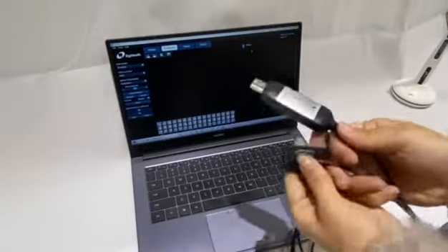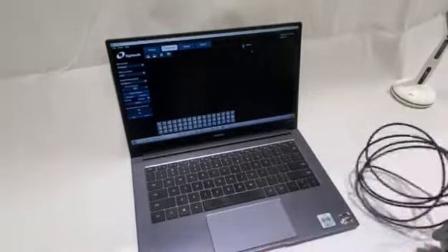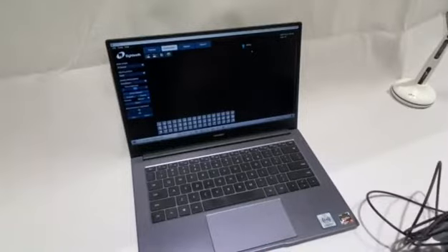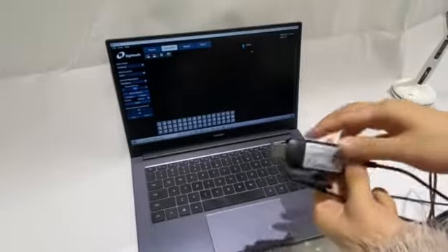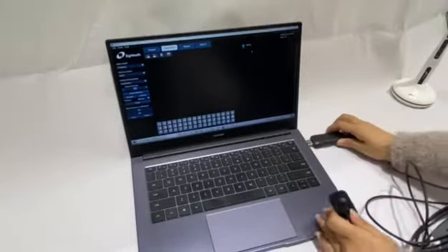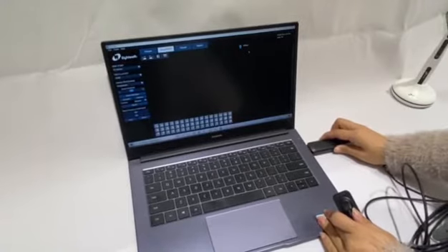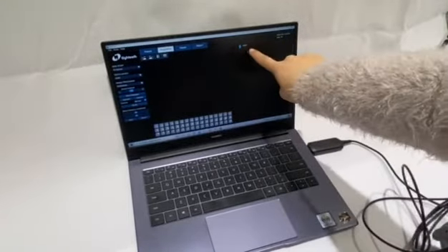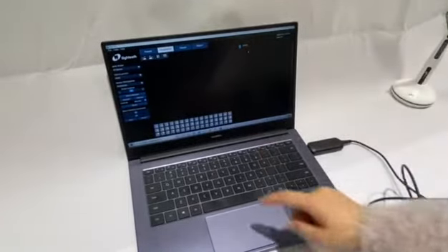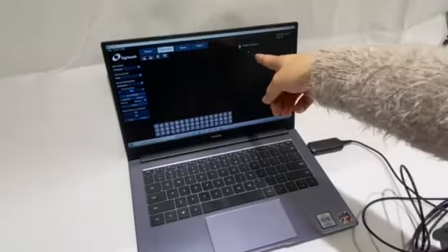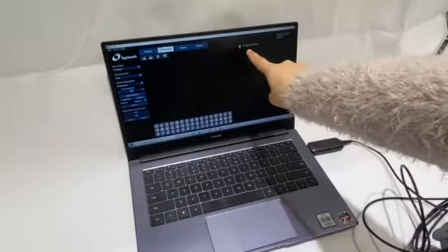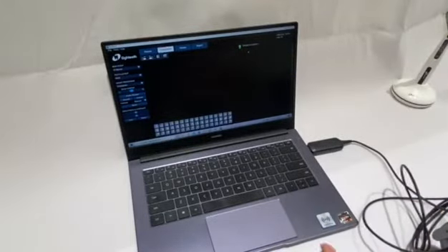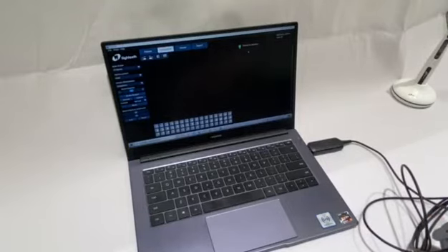Now we connect this to the laptop. Okay, it shows waiting for exposure now. It means the sensor is already detected.